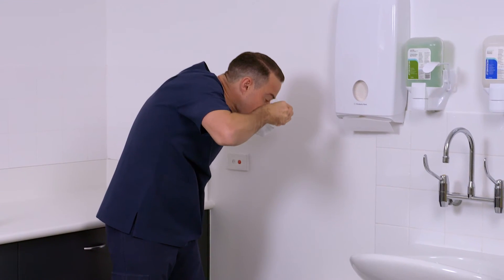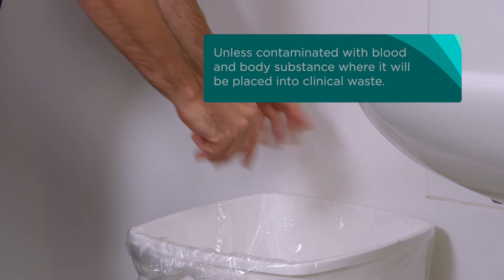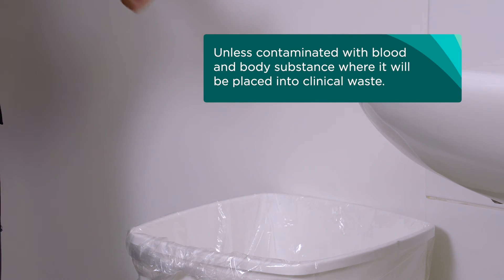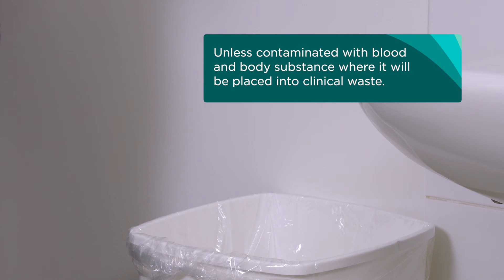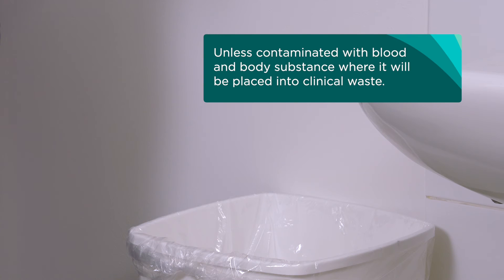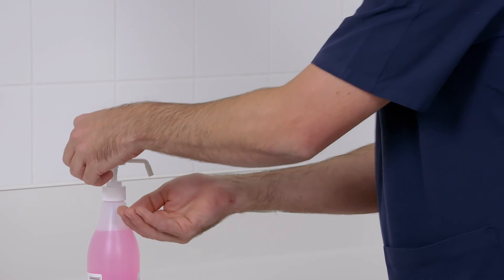Discard the used respirator in the general waste bin unless contaminated with blood and body substance, where it will be placed into clinical waste, then perform hand hygiene.